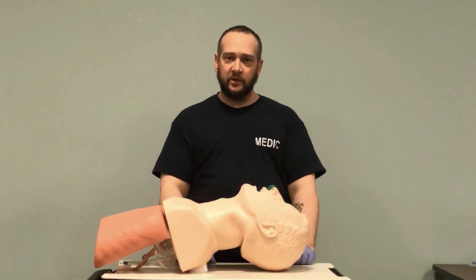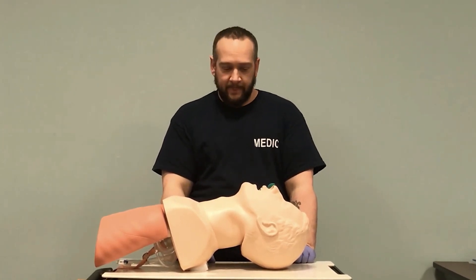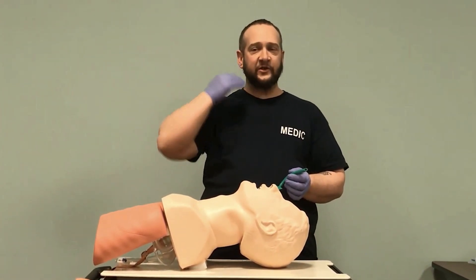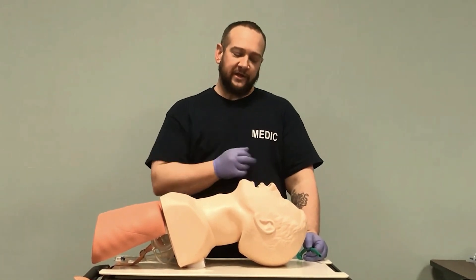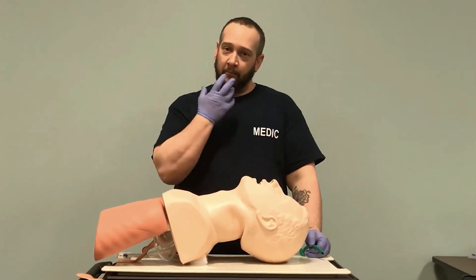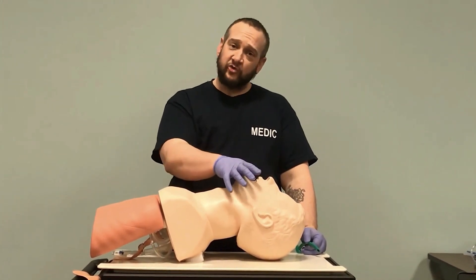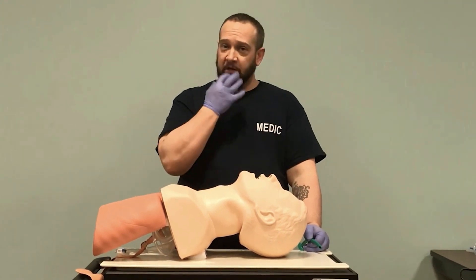If a patient has significant facial trauma, an NPA would be contraindicated. Because of how this goes along the hard palate and the base of the skull, if we had a basal skull fracture — where we see CSF or blood coming from the nose or ears — this would be a contraindication. Major facial trauma, such as a maxilla fracture, would also rule out NPA use.